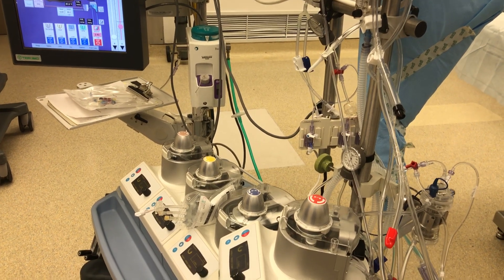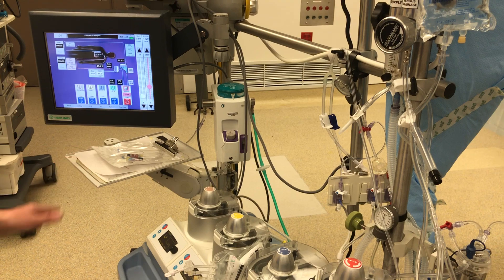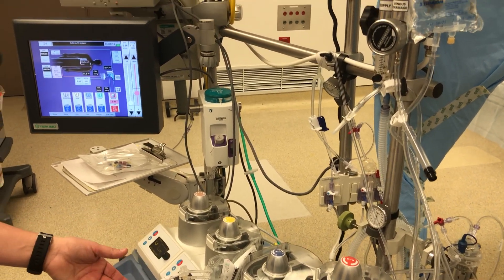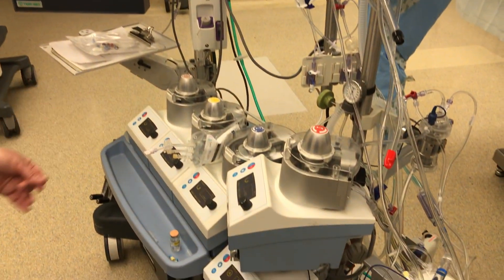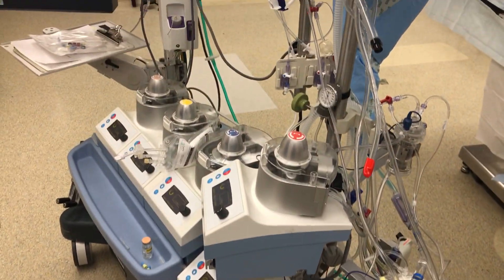Final thoughts? As with everything in cardiac, it's all about the tubes. Our tubes go into the heart and bring the blood to the machine and back. Anesthesia tubes go into the throat where they're left, and then it's just arteries and veins.